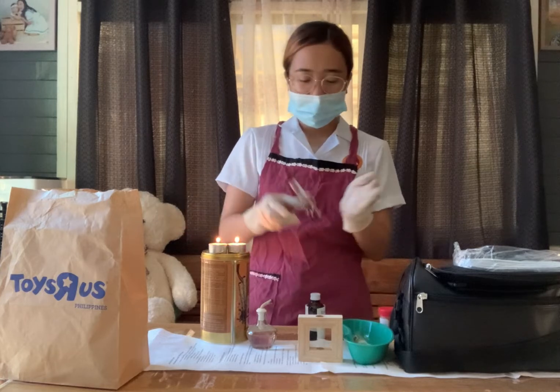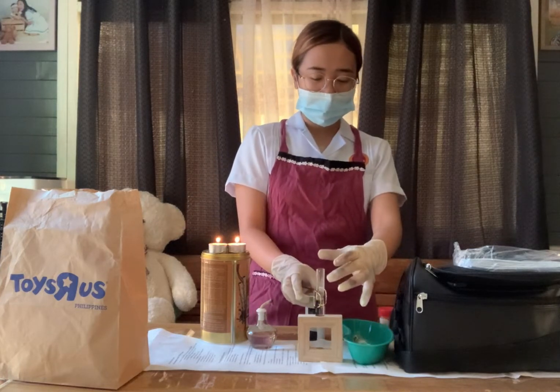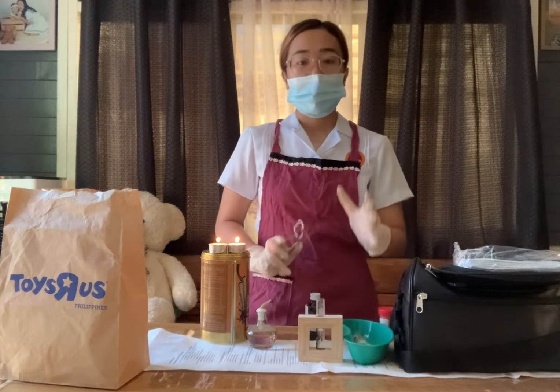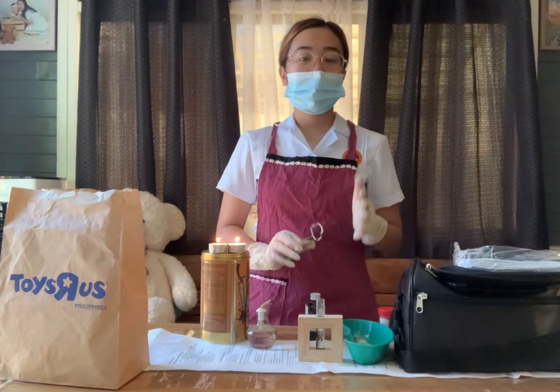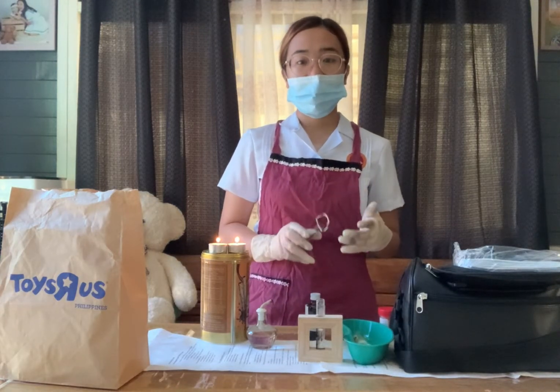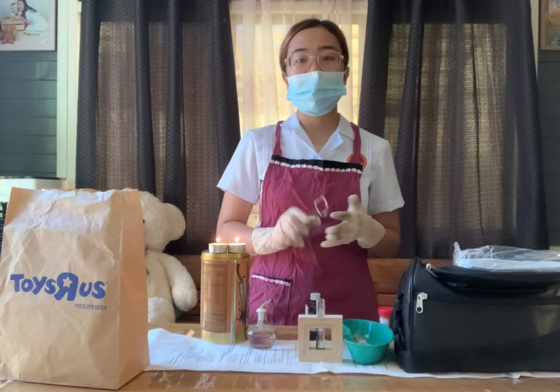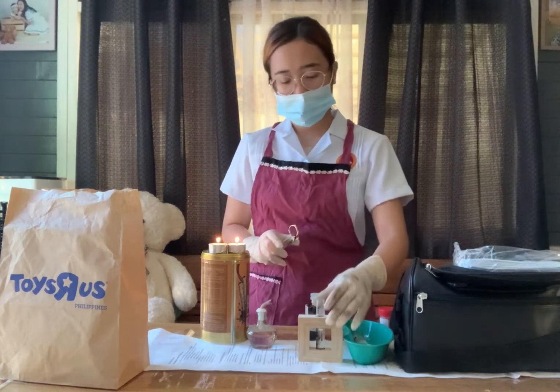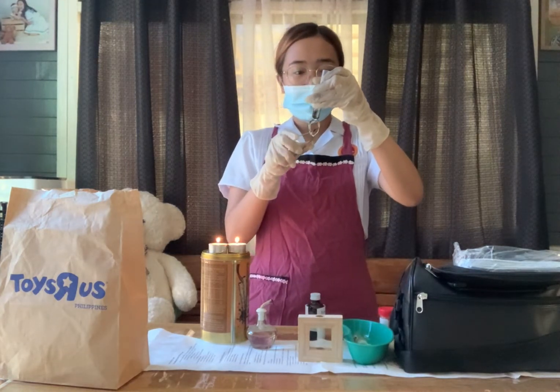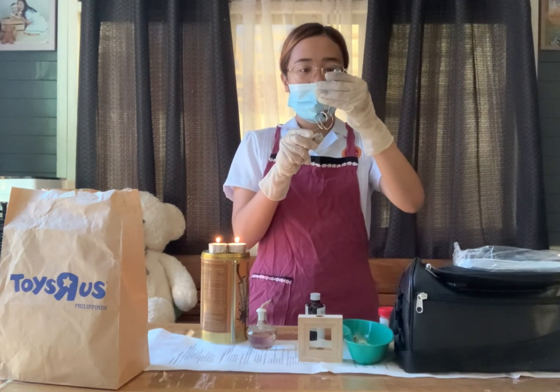Make sure that when heating the test tube with the urine sample, the mouth of the test tube must not be facing the examiner or the patient. After boiling the test tube with the urine sample, let it cool for one minute. Then assess if there are any changes in color based on the indicator.